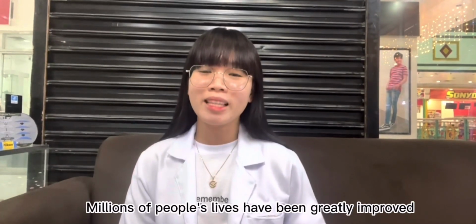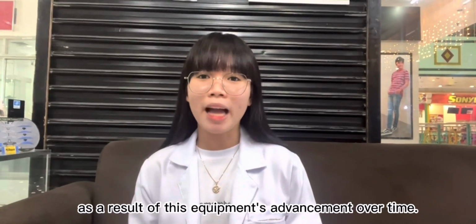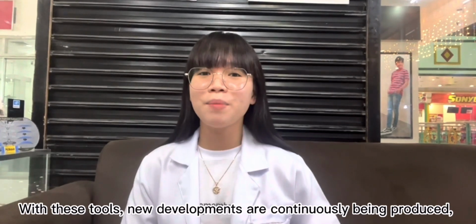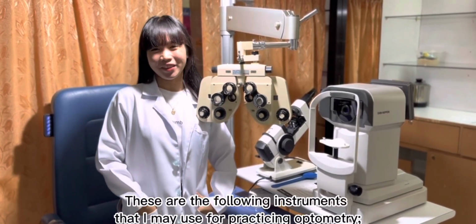Millions of people's lives have been greatly improved as a result of this equipment's advancement over time. With these tools, new developments are continuously being produced, and it is amazing how far we have come. These are the following instruments that I may use for practicing optometry.